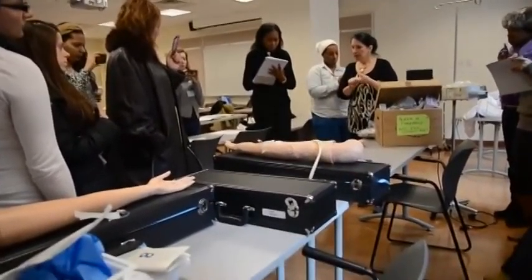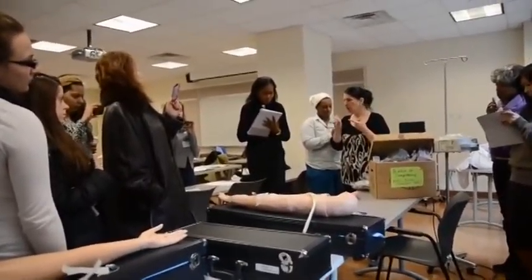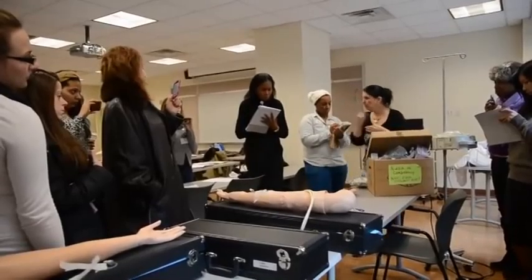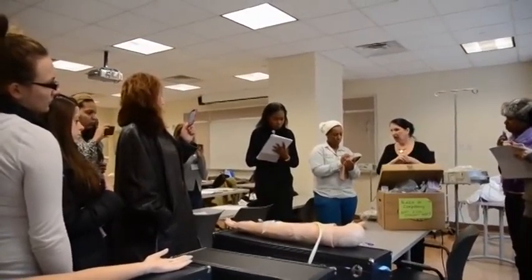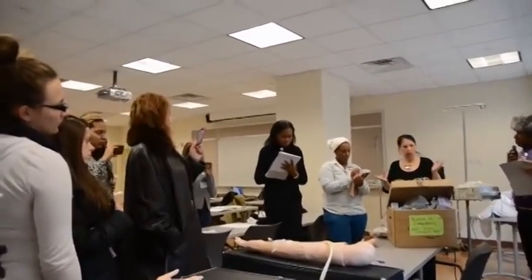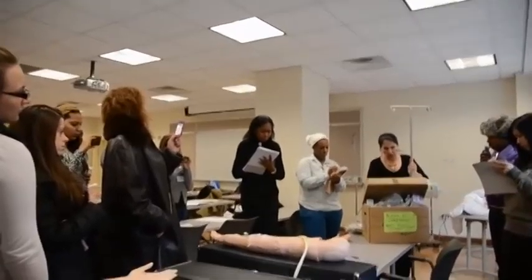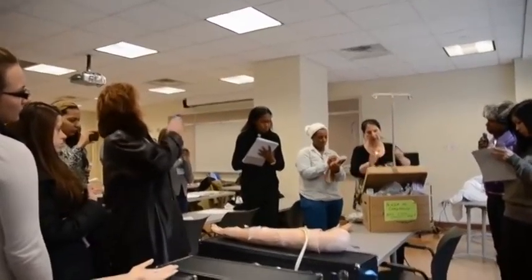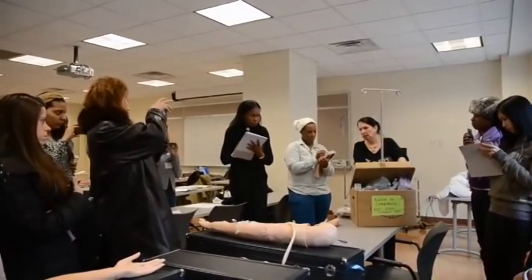I'm going to need an antibiotic bag with the primary tubing, long tubing, because it's a saline lock. I can't use short tubing, and I have my IV pole. Now, I'm going to pretend that this is not a pump, it's just an IV, because I don't need the pump.